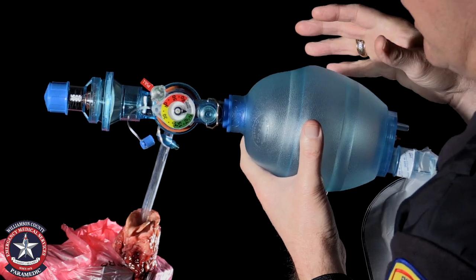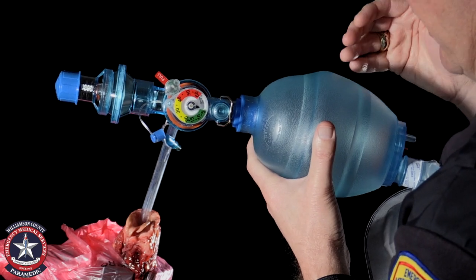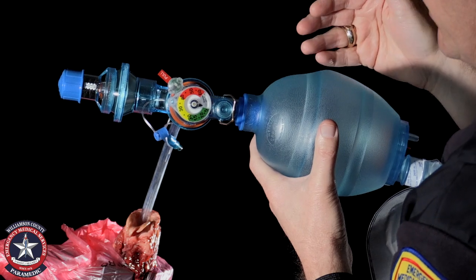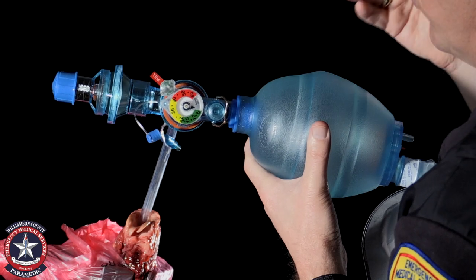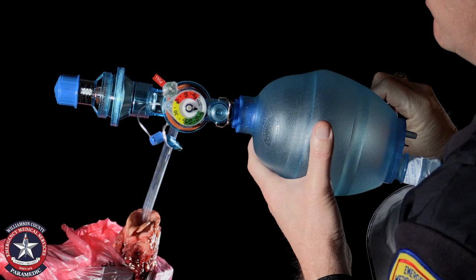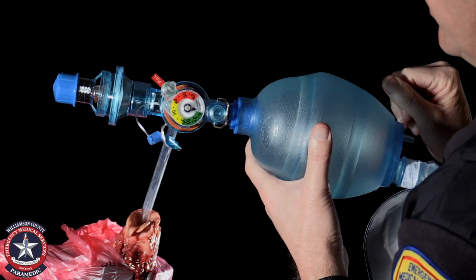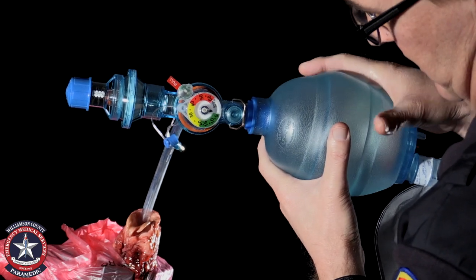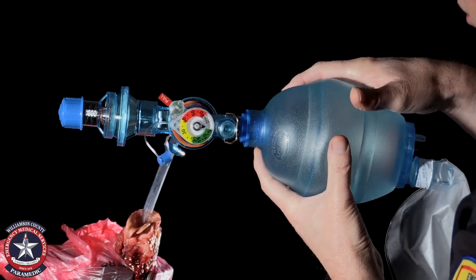We're going to demonstrate ventilating without any PEEP, then with five of PEEP, ten of PEEP, fifteen, and twenty — gradually increasing the level of PEEP. Then we'll take that down completely and show what happens as the lung deflates. Our first ventilation will have no PEEP at all.